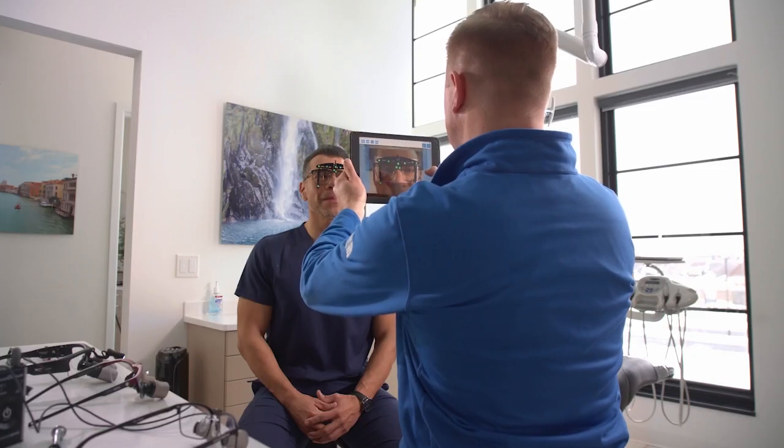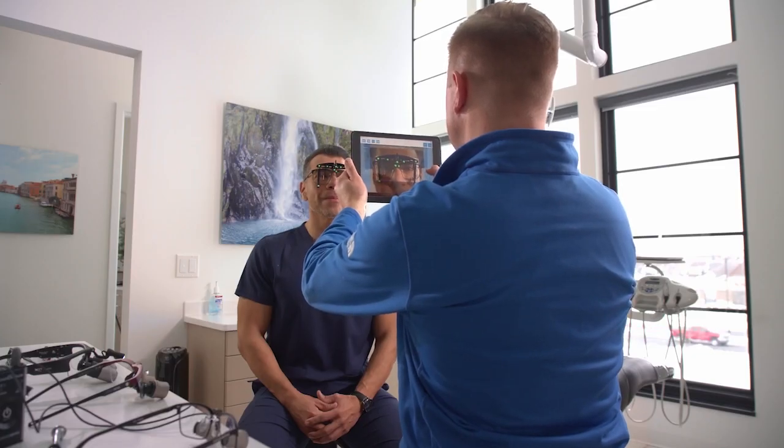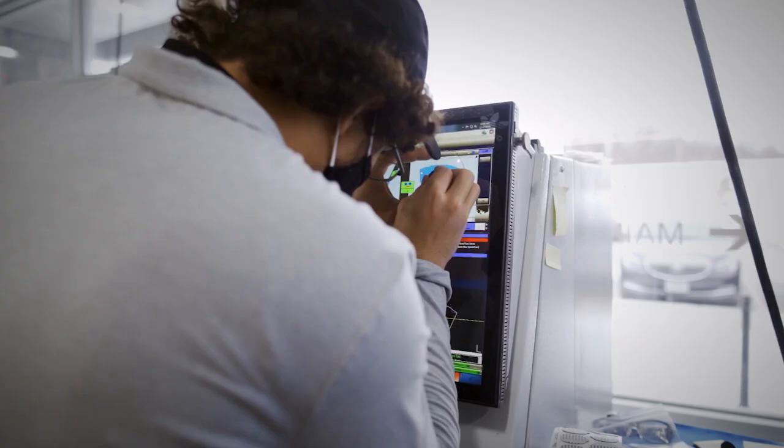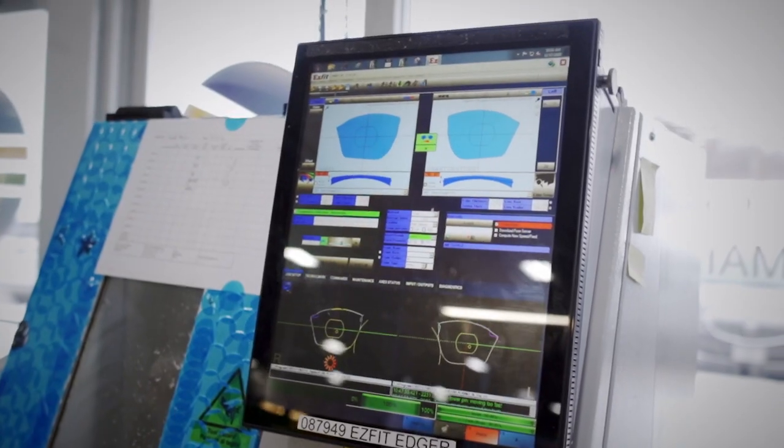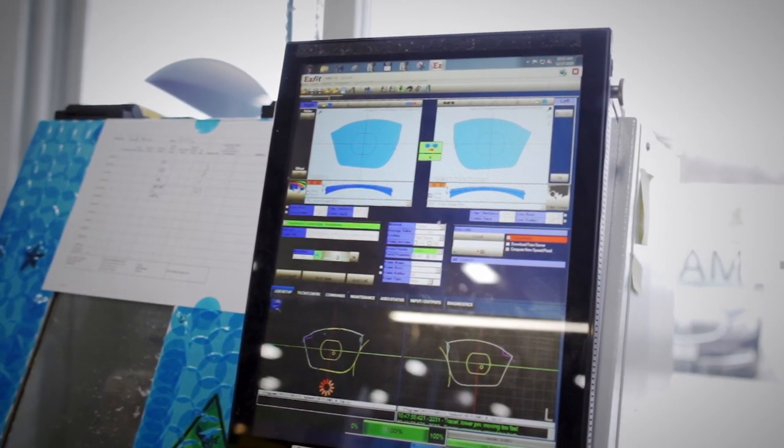Every measurement assures your Orascoptic Loupes fit as beautifully as they function. Because your face is the digital blueprint for each handcrafted and expertly tuned step that follows.